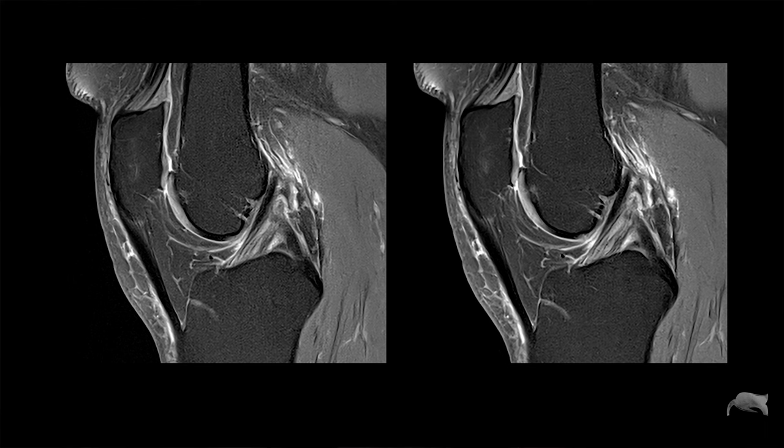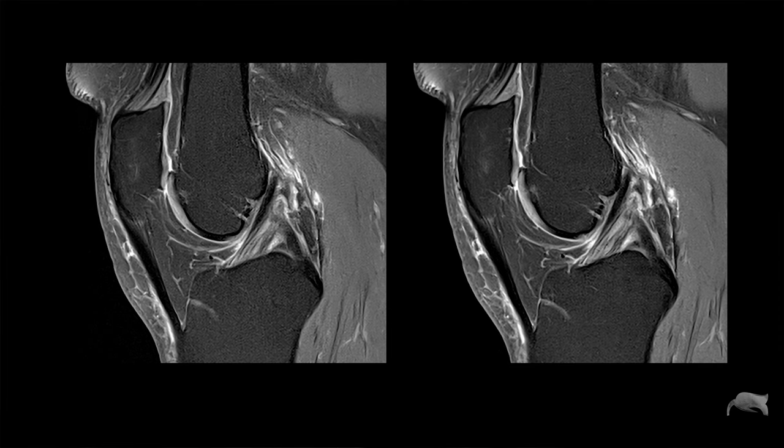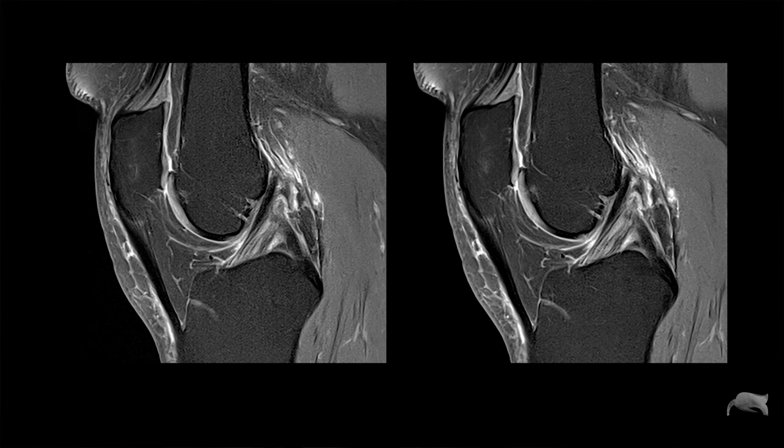Hello everyone, welcome back for another video. It's been a while since I had a topic like this. Today we're going to talk about matrix — basic matrix, practical part. Of course I'm going to talk a little bit about the theory, but mostly practical. Do you believe me if you look at these two images, they have the same resolution but the parameters are totally different? One of them has a different matrix. Let's dive into this topic — tune in and I will show you.